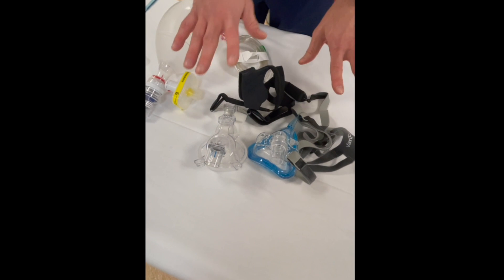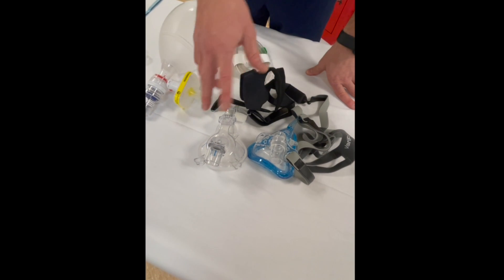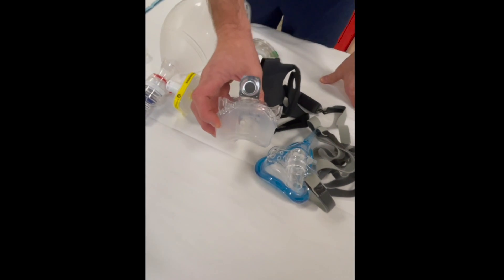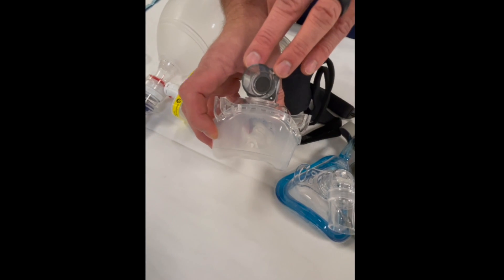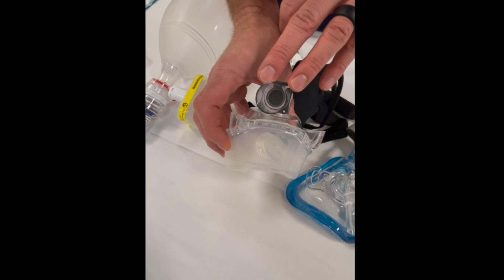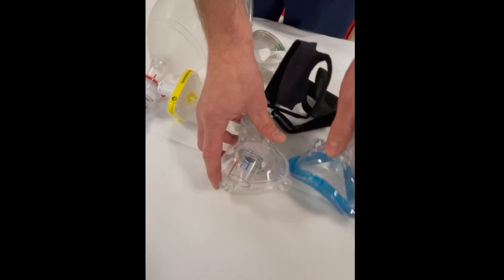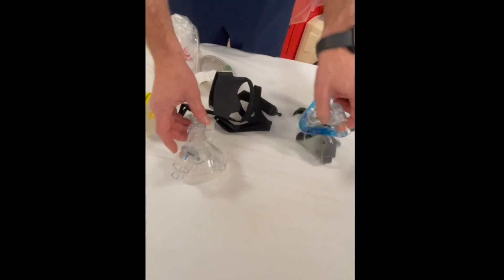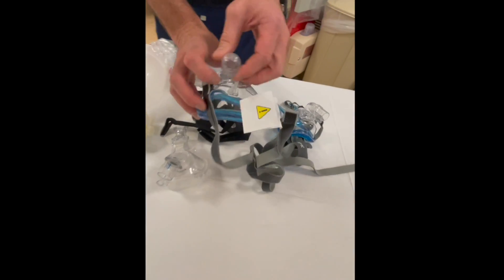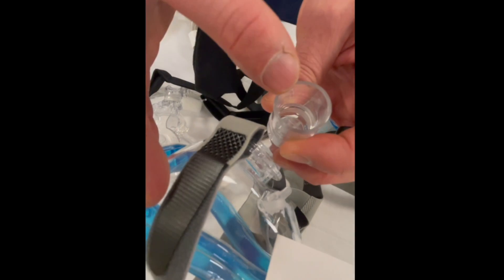Here we have our two different styles and there are some important nuances to these masks. If you look in the bottom you can see that there is a one-way valve in there. These valves need to be removed because this is how the patient is going to exhale.